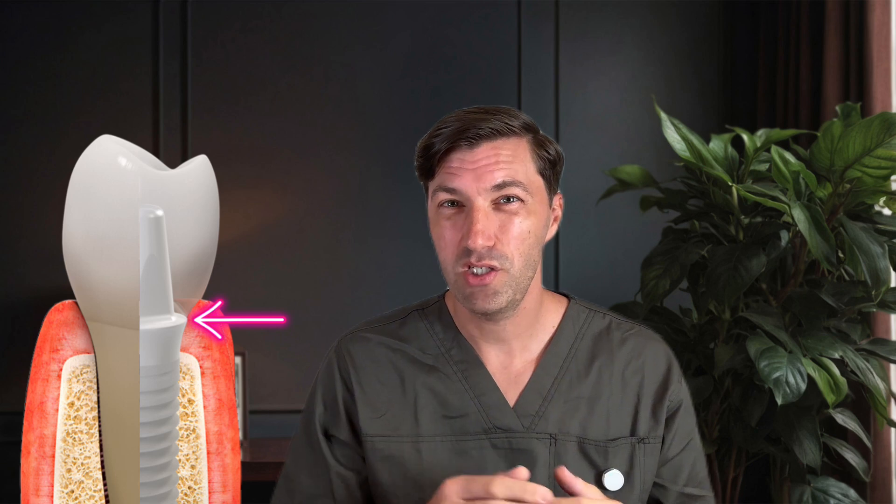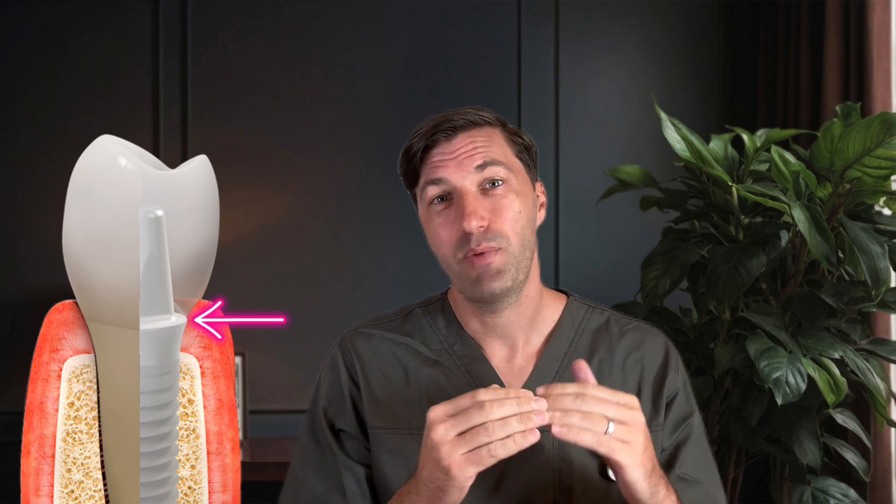Biologically speaking, both implants are somewhere between tissue level and bone level designs. Here's the catch — you can't place the implant shoulder sub-crestally, so you need to place it sub-gingivally. Straumann suggests positioning the shoulder about 1.8 mm above the bone level. With the one-piece implant, the crown sits right on top of the shoulder, meaning the crown margin ends up about 1–2 mm below the gumline on the buccal side, and maybe even 3–4 mm sub-gingival in the proximal areas. You'll seal this margin with cement you have to clean later.